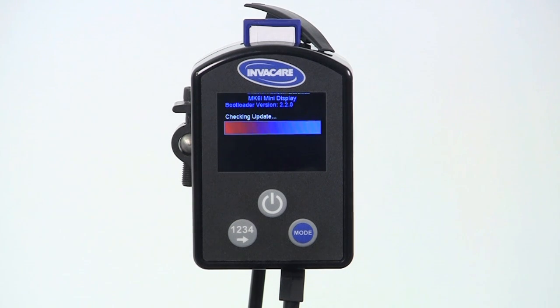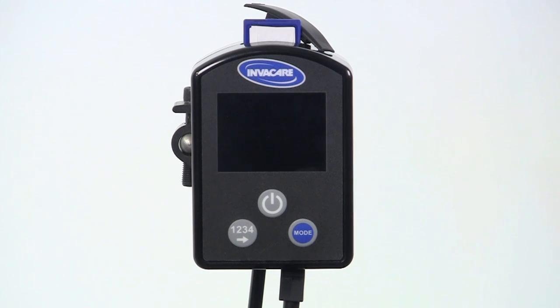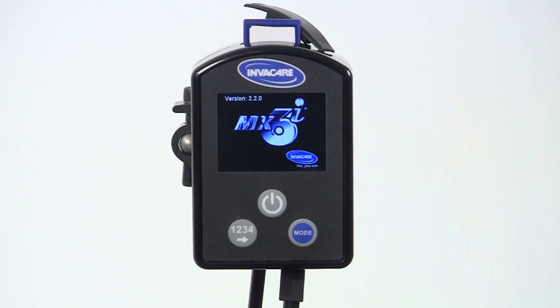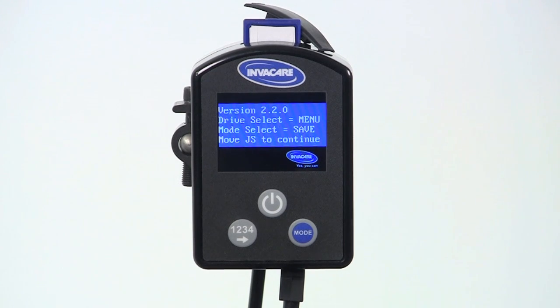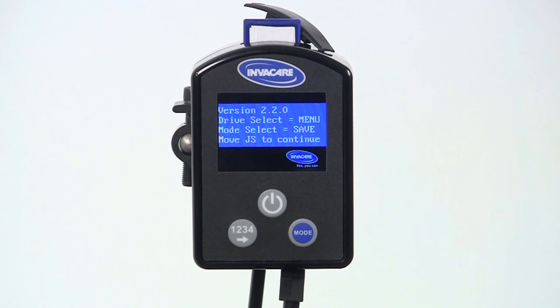When the software update is complete, a brief screen indicates success. The screen will automatically transition to programming mode if you'd like to continue. If you'd like to download drive programs or systems and seating profiles from here, please see the tutorial called Installing From or Saving To Your Mark VI SD Card.